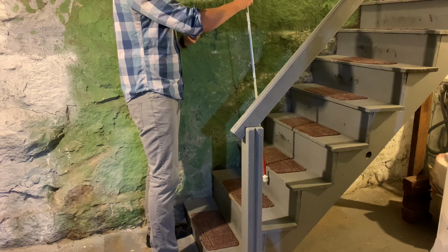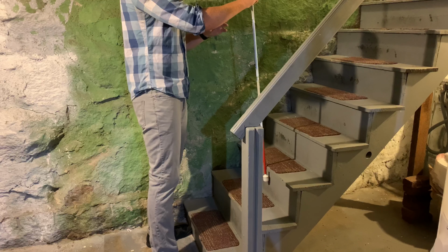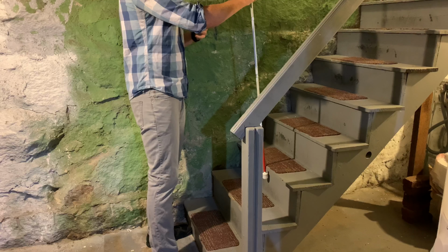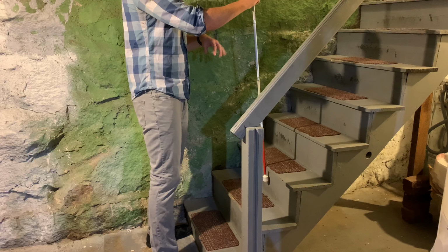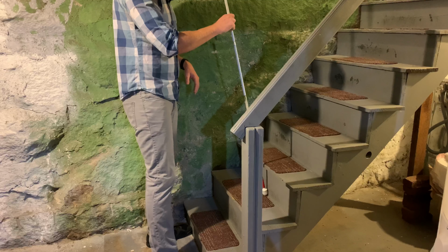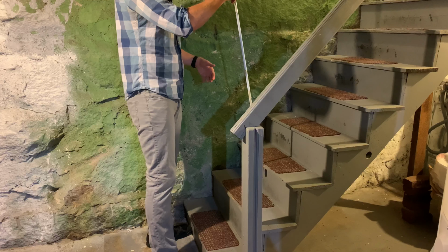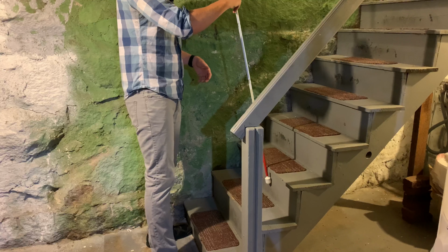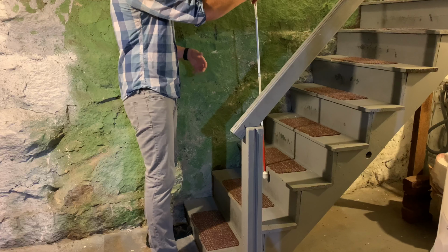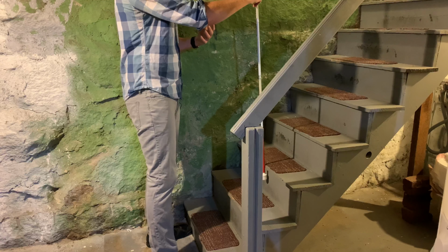And you're going to want to find the lip of the third stair. So the lip is where the vertical and horizontal part of the step meet, and you want your cane tip to be resting just below the horizontal part on the vertical side. So if you bring your cane up from the bottom of the top of the second stair up until you find the lip, but don't actually go over the lip onto the third stair. So that's what you are looking for. You're looking for where your cane tip is resting on the lip of that third step, arm extended out in front of you, holding the cane in pencil grip, probably lower than the handle.